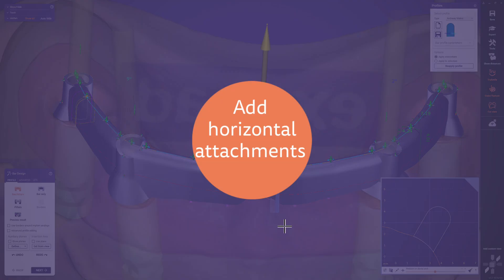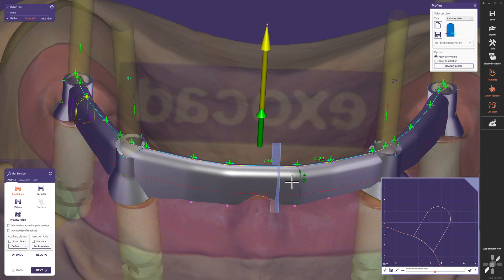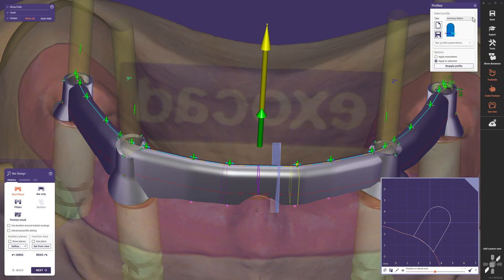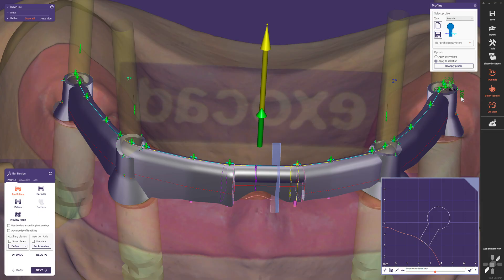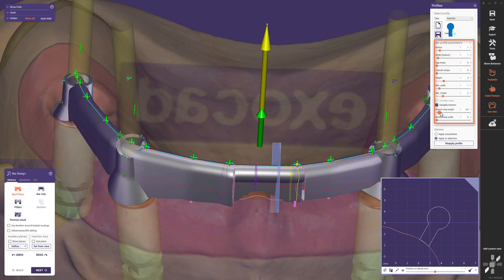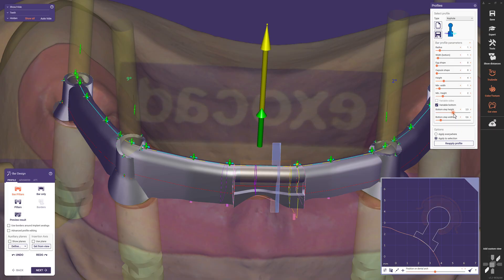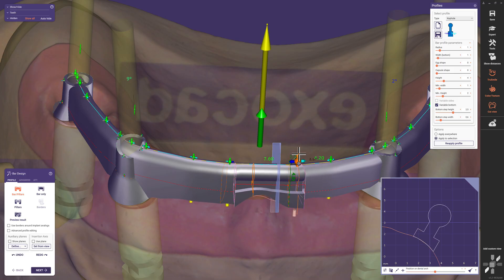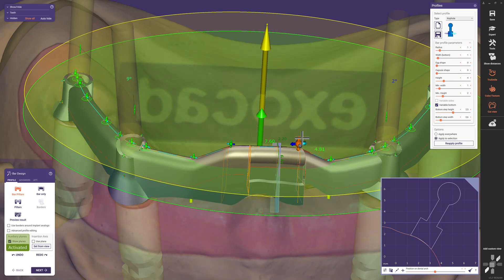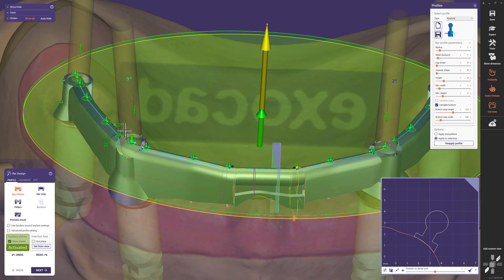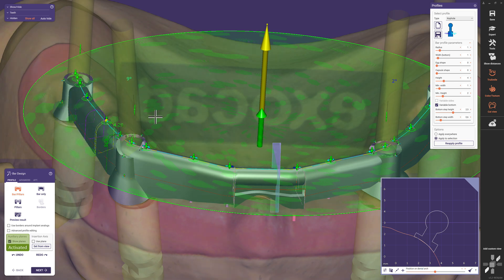Now let's add a horizontal attachment to our bar design. We click on the section or control point on the right where we want to place it, activate 'Apply to selection' instead of 'Everywhere', and select the bar profile 'Keyhole'. The selected profile appears in the selected area left of the chosen control point. To reinforce the structure, we open the bar profile parameters and set individual height and width values for the bottom step, incorporating the surrounding bar design and required space for the female part. We activate the arrow pointing to it by clicking until it turns dark blue — locking the included section to move parallel to the reference plane. Showing planes is very useful especially for parallel bar designs.